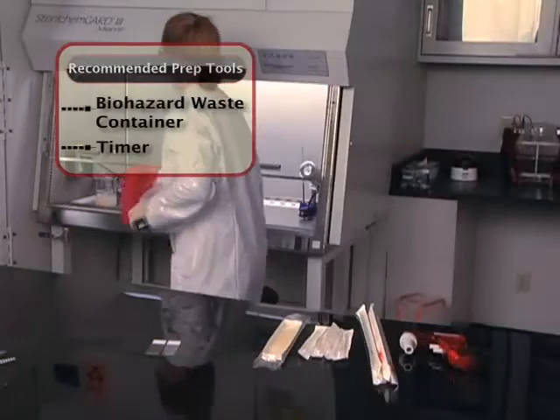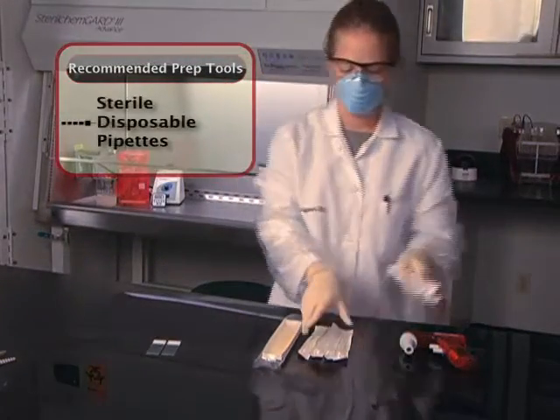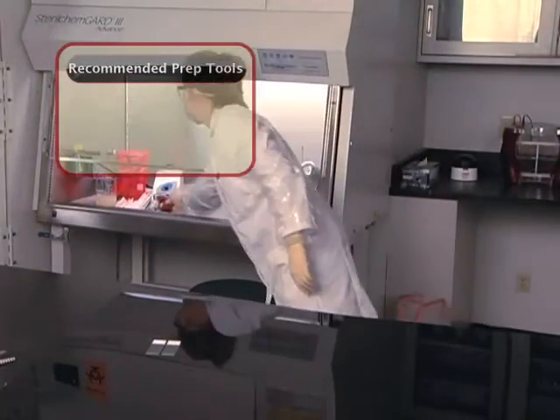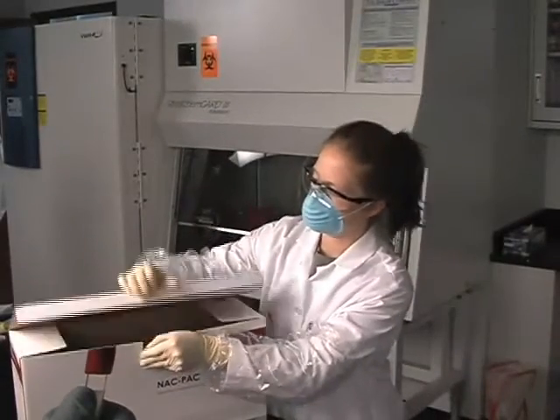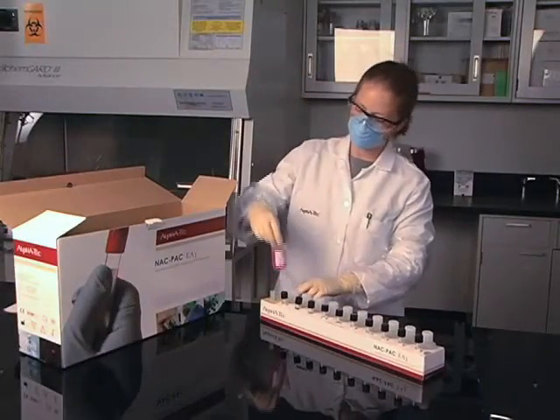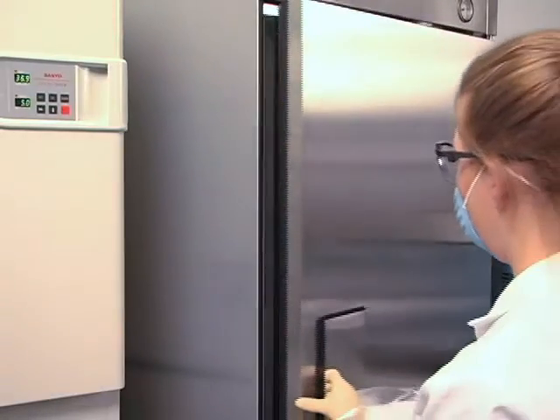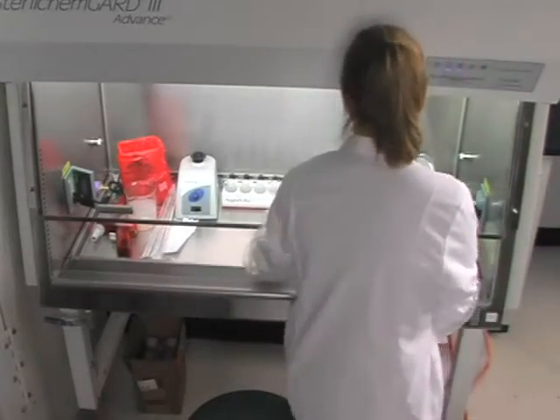It is important before processing respiratory specimens for AFB that all the necessary equipment, reagents, and supplies required to perform the procedure are ready for use and easily accessible. This ensures that the processing will be carried out properly and efficiently while protecting both the patient specimen and the laboratory technologist. Be sure that the proper volumes of reagents are available for the number of specimens being processed. Check that the reagents have not exceeded their expiration dates and are not showing turbidity, precipitates, or other abnormalities. Allow reagents stored at refrigeration temperatures to reach room temperature prior to use. Line up the specimens in the biosafety hood, making sure to only process the samples that will fit in one centrifuge load.